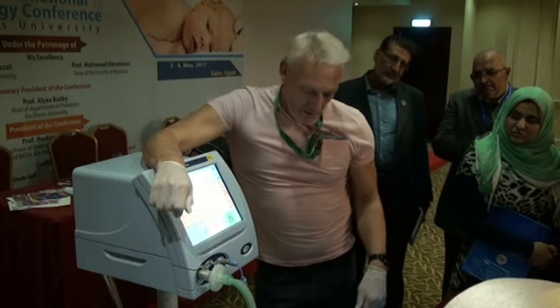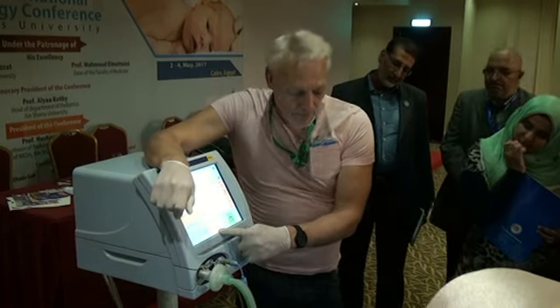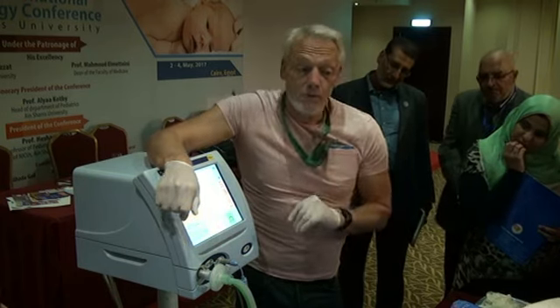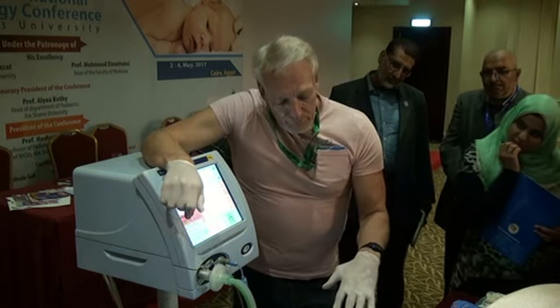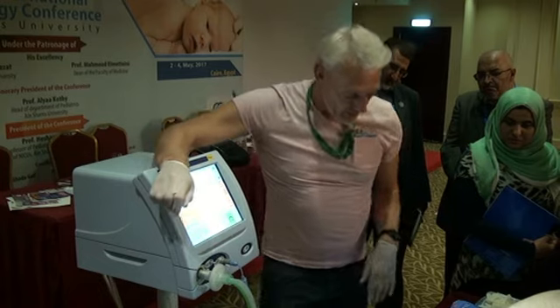So when I look at that, I think, yep, we're struggling. I know I've turned the PEEP off and we've got a PEEP of 3, but that's still a PEEP of 3, and that's the settings I used to use 25 years ago. We thought a PEEP of 4 was dangerous. So these lungs are still not normal, and these are very good lungs. These are lovely and compliant, and I'll prove that to you in a minute.